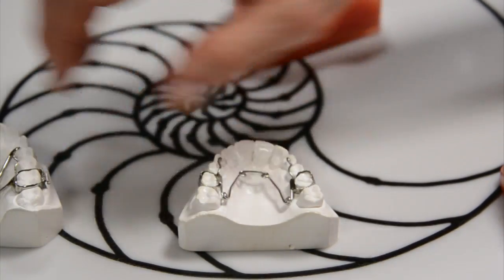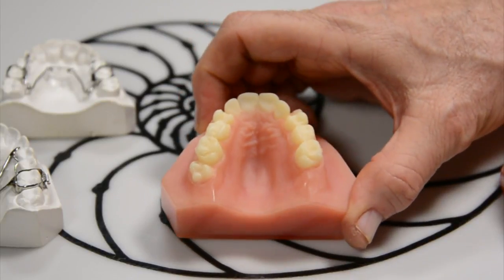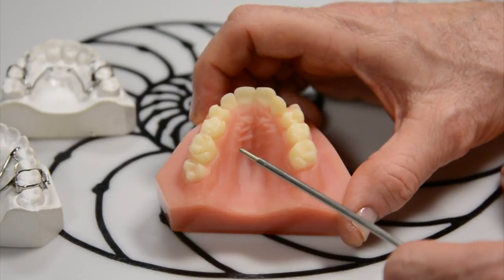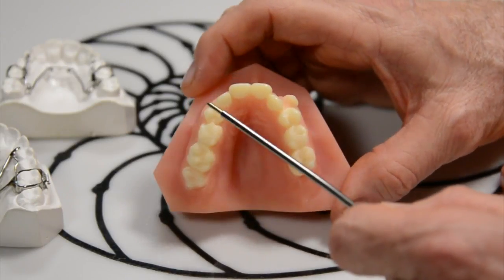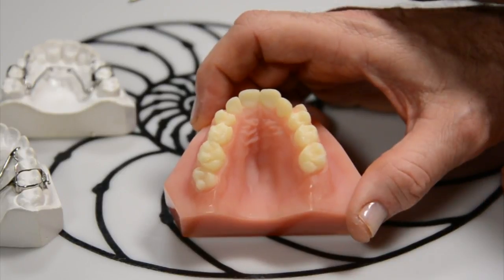What is nice to show you is that with either method you're going to get expansion. This is a young man who came in at 12 years old. You can tell he's very constricted — the reasons could have been thumb sucking, genetics, or airway — but whatever the reason, this is extremely crowded. He also has a cuspid which still needs to come in. So we used the quad helix.